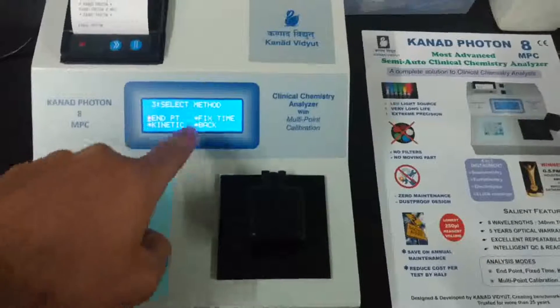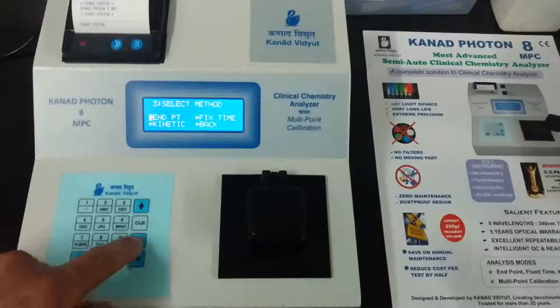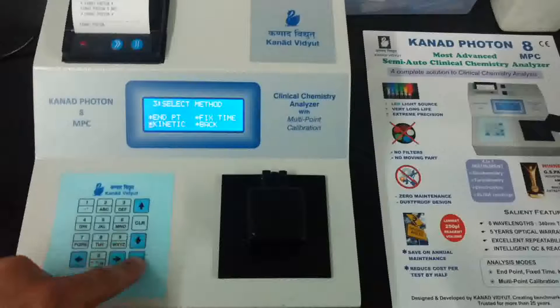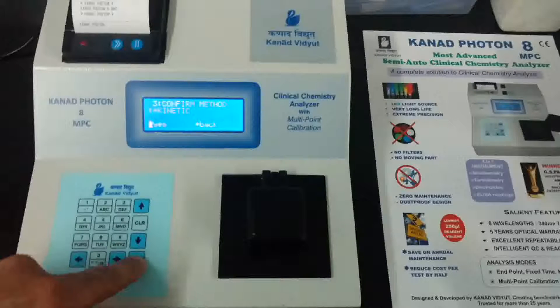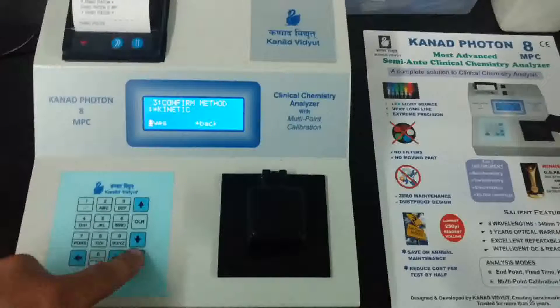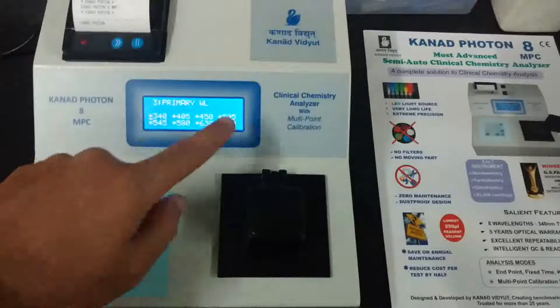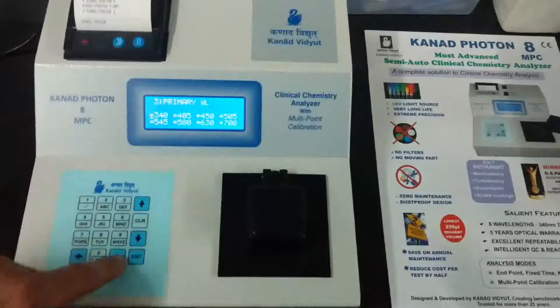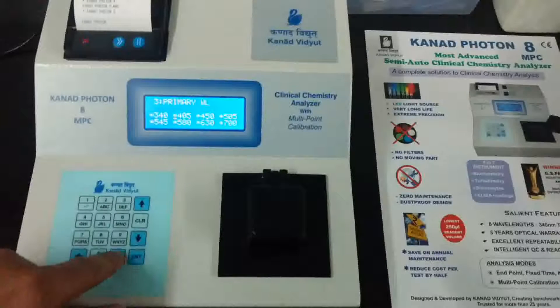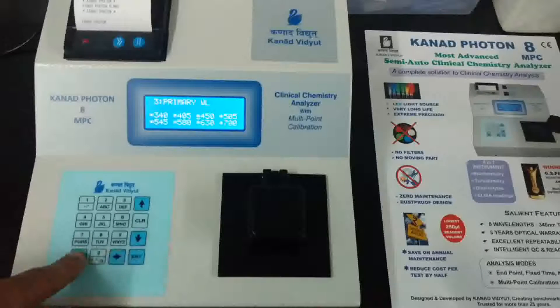Now select the method of the test: endpoint, fixed time, or kinetic. For this demonstration we will select the kinetic method. Confirm method kinetic: yes.